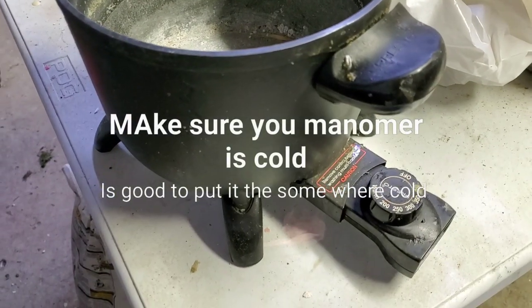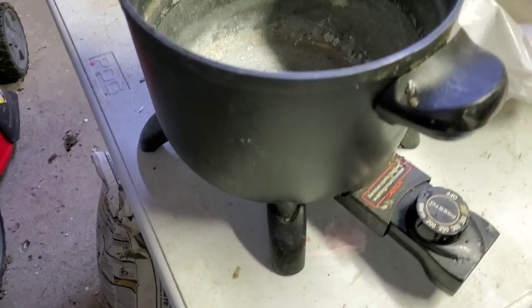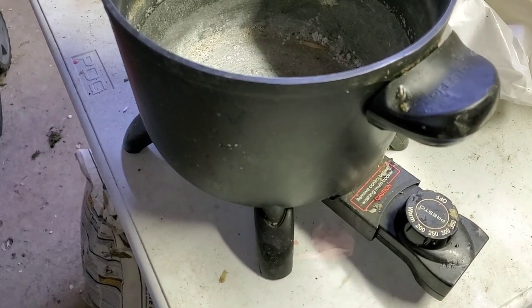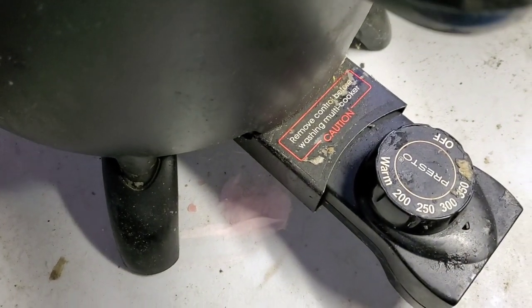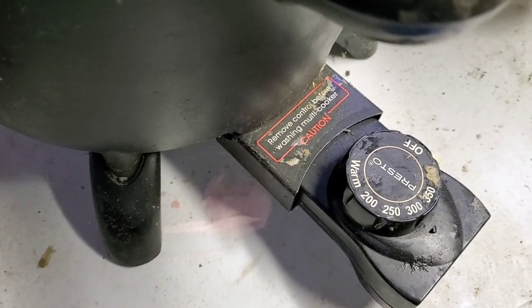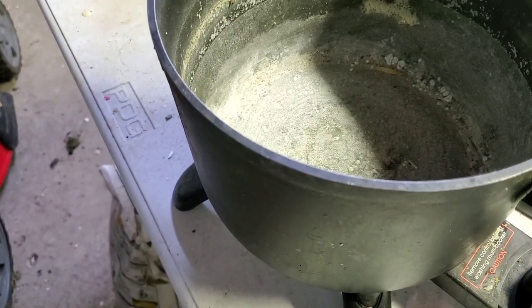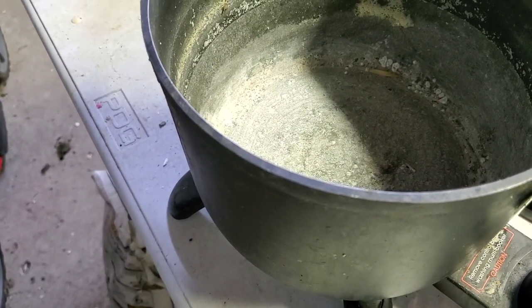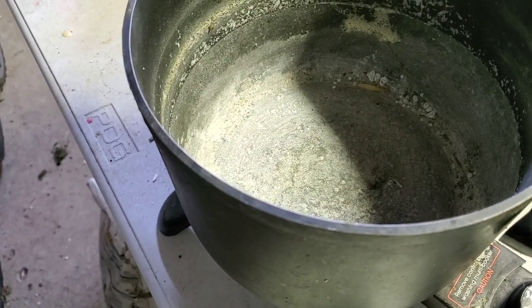For this processing, you're also going to need this type of fryer. This is a deep fryer you can get at Walmart that can regulate your temperature — 200, 250, all the way to 350. So for you to kind of boil your teeth and then take the wax off the mold, off the models and the teeth.